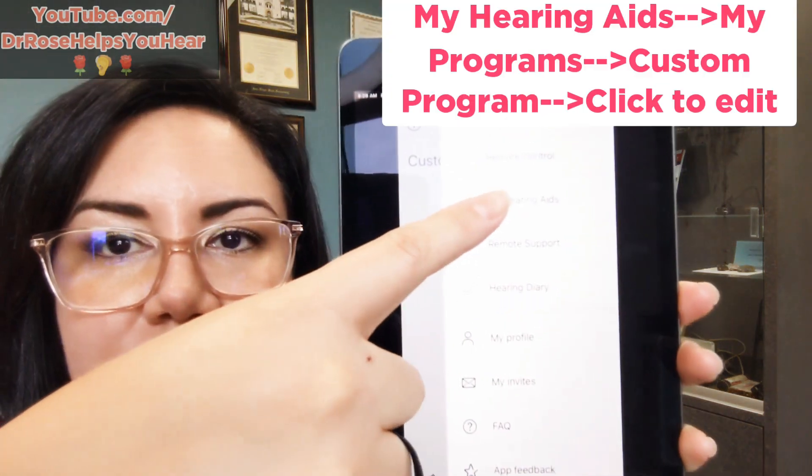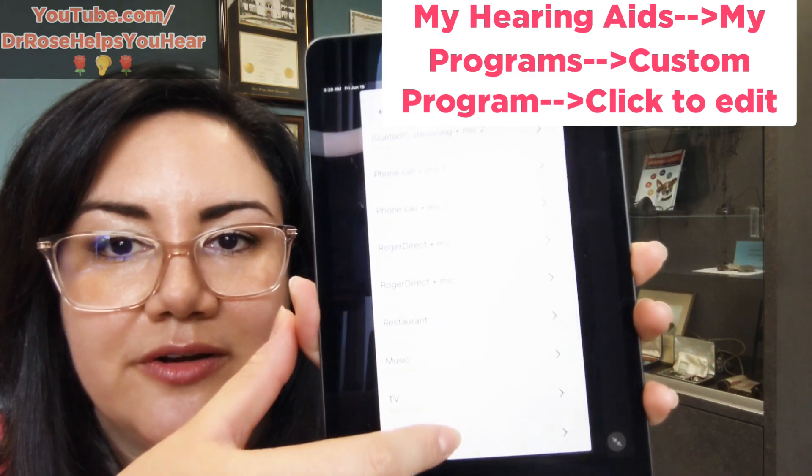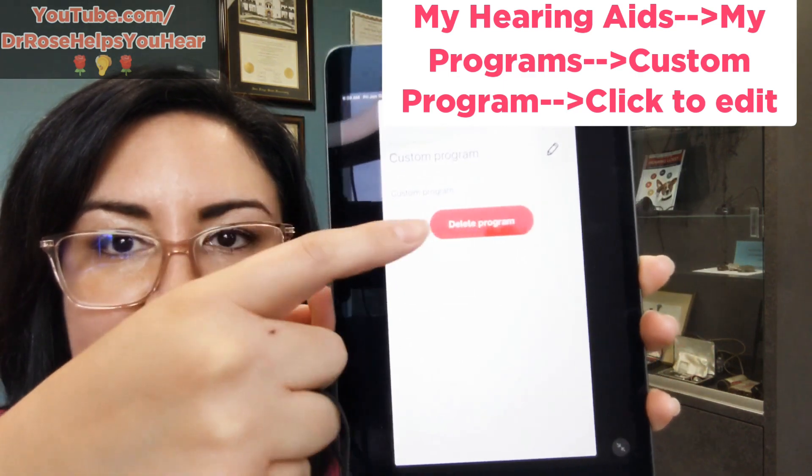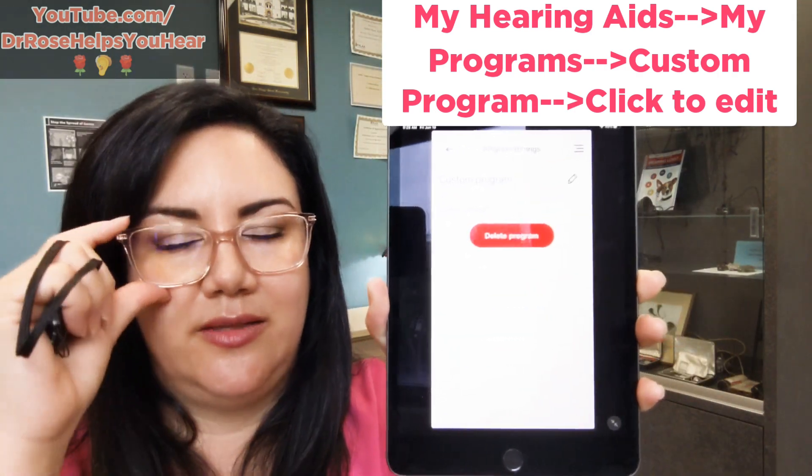If you've made a bunch of custom programs, you can go to My Hearing Aids, then My Programs, come down to your custom one, and rename or delete it by hitting the little pencil button. I had a patient with 20 different custom programs who didn't know how to get rid of them — it is a little complex to navigate, but that is the my Phonak app. It's great and simple to use, and gives you some extra controls compared to the Oticon On app.